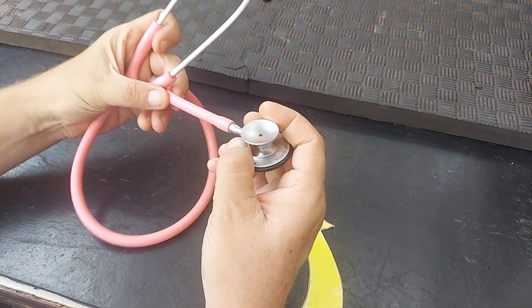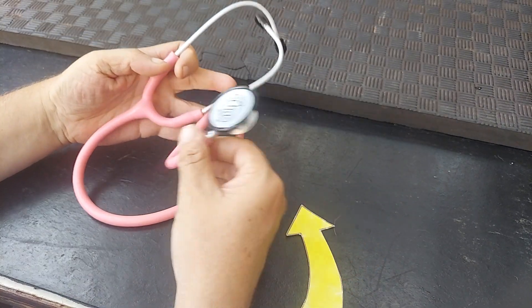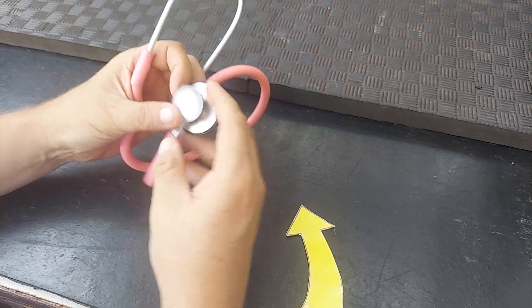It's a good size, it's a breakaway, it's in multiple colors. This one's in one of their pinks. They have a couple of different pink colors.